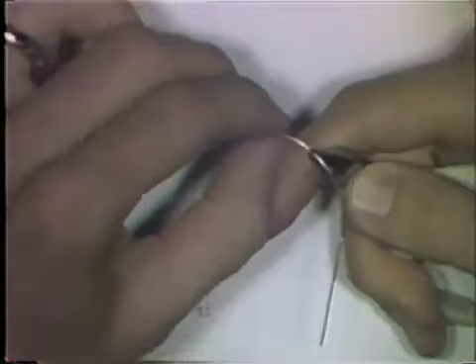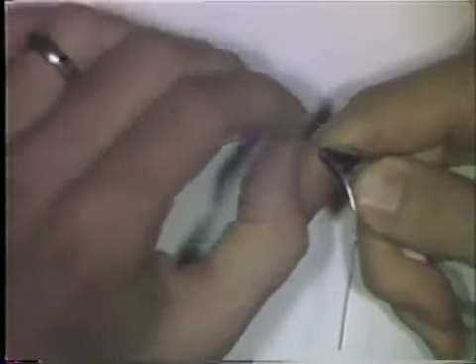You can do some of this adaptation with your finger too — again using the pliers as a vise and smoothing the wire with your thumb and finger. This takes some practice.